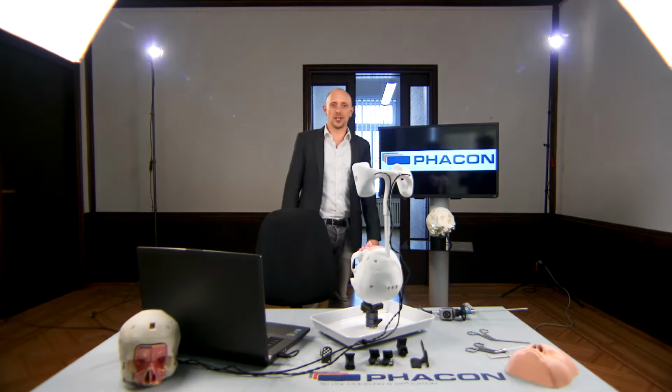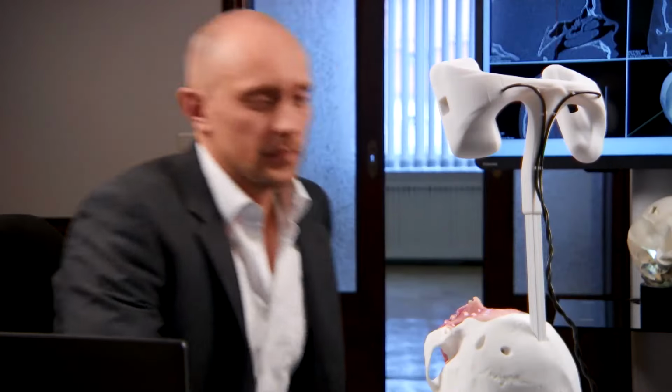Hello, my name is Robert Hase, and in the next few minutes I will show you the PHACON concept. This means I will explain the assembly instructions and the function of the systems as well.